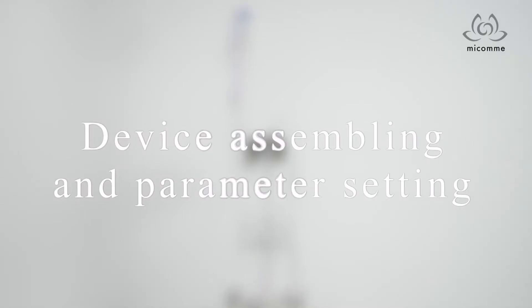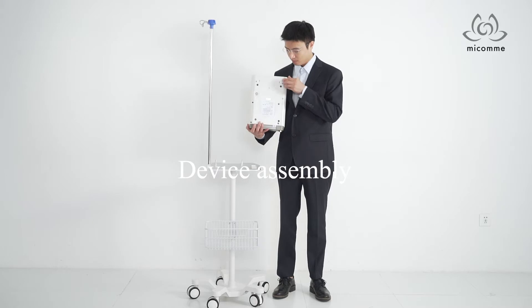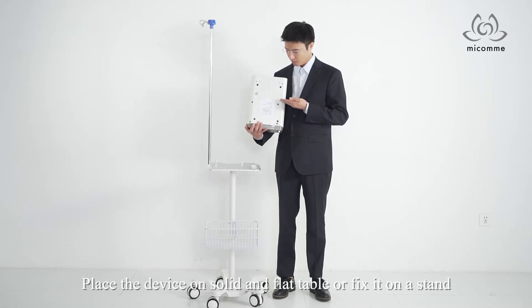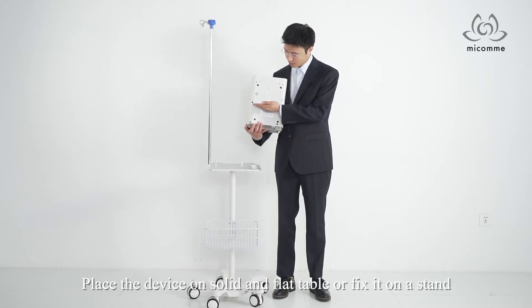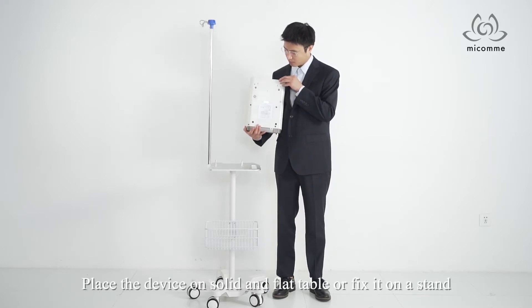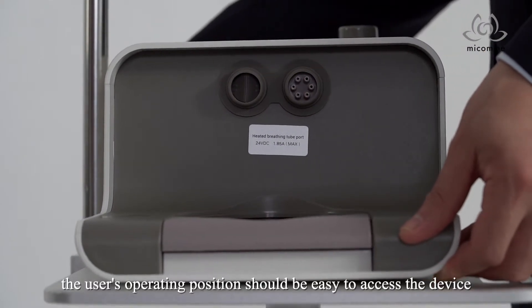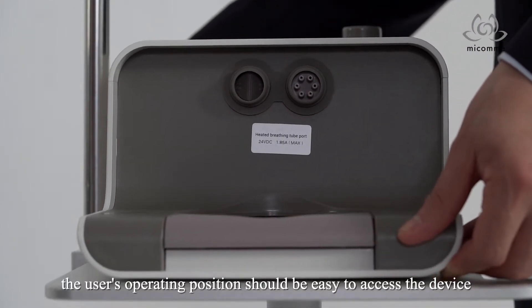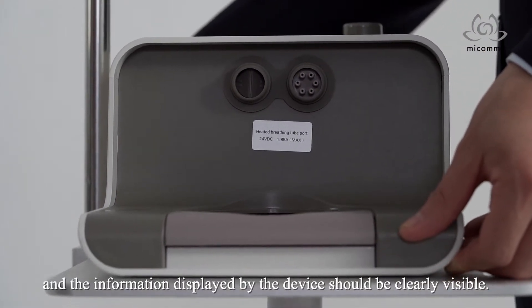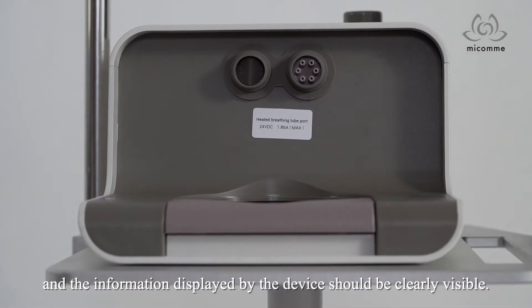Device Assembling and Parameter Setting. Place the device on a solid and flat table or fix it on a stand. The user's operating position should be easy to access the device, and the information displayed by the device should be clearly visible.